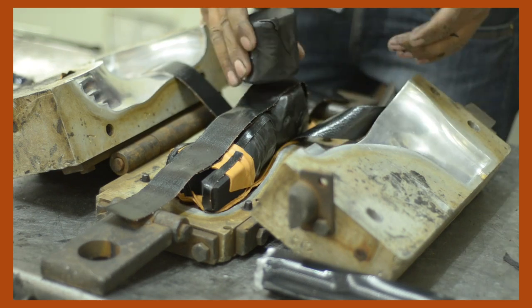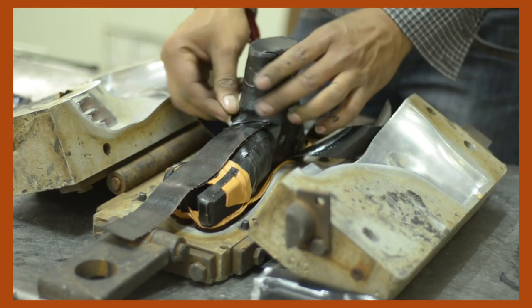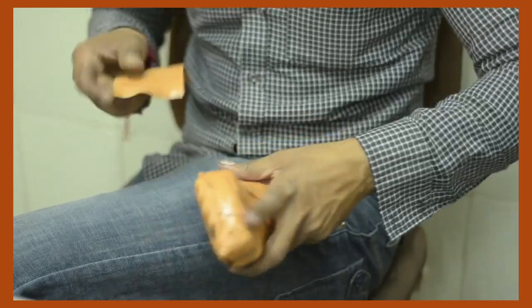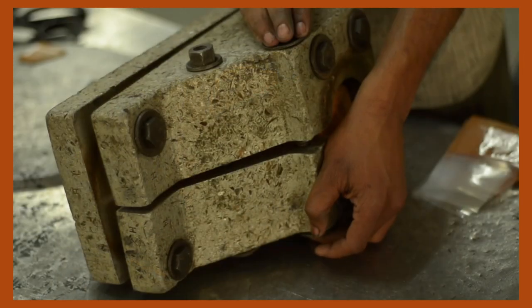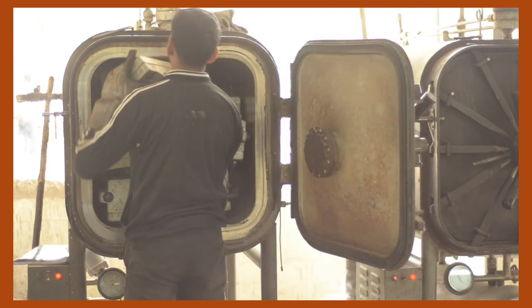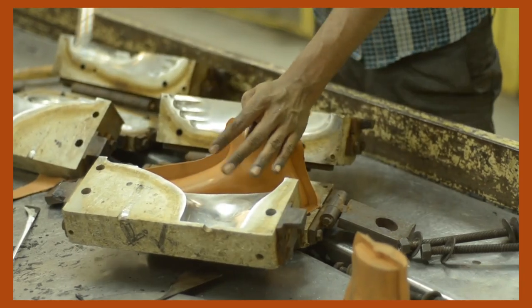Then you come to the bottom parts where single small plastic parts — various fingers — are put together and bound by rubber. These are then put into the die and pushed into the vulcanizing machine, which is the oven. After vulcanizing, you have your foot piece ready.